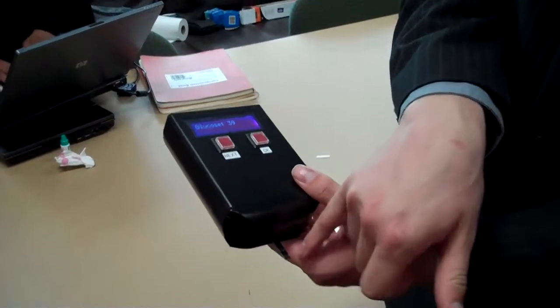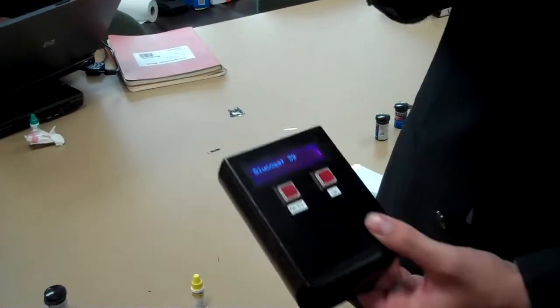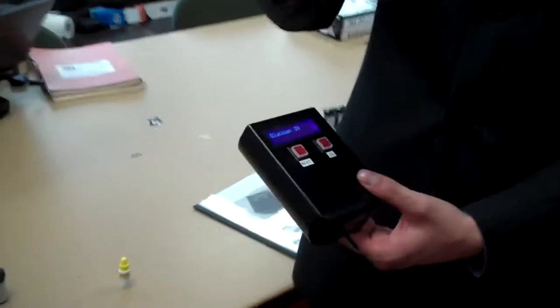We have like a 6 microamp current going inside there, and then that is picked up. We use a current-to-voltage converter circuitry to turn it to voltage, and we amplify it up to about 5 volts so we can get our full resolution from our analog-to-digital converter.